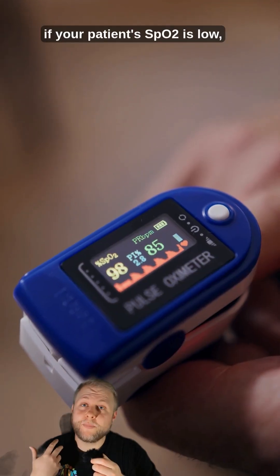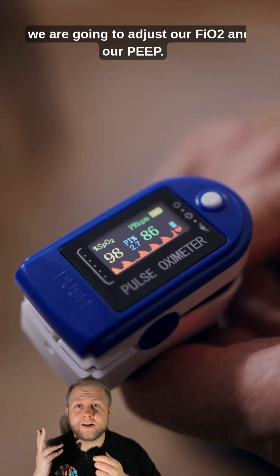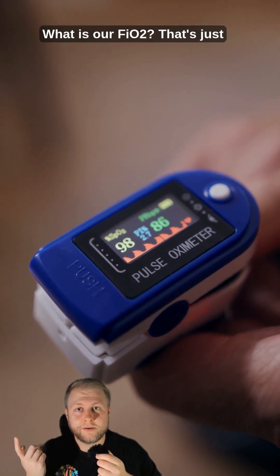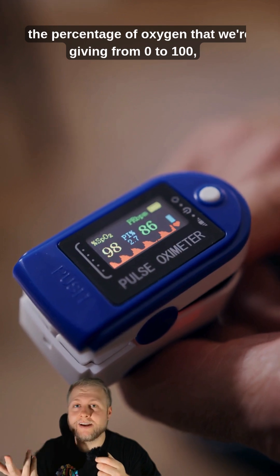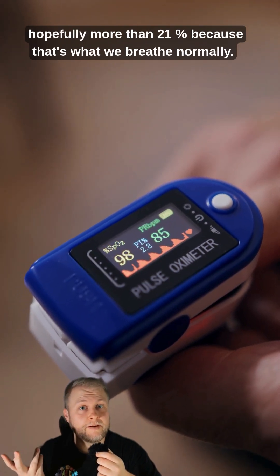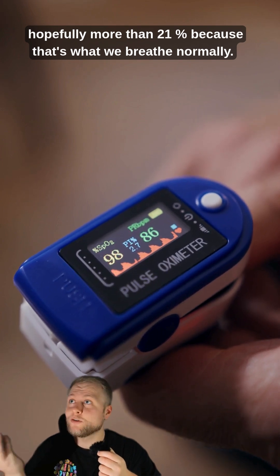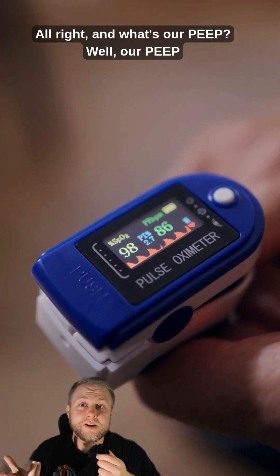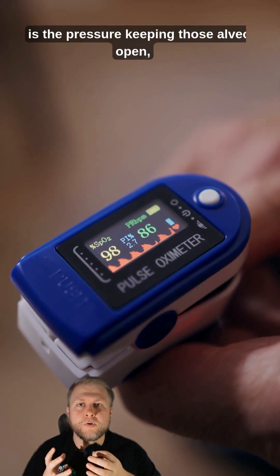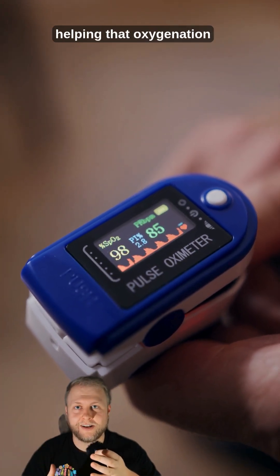So if your patient's SpO2 is low, we are going to adjust our FiO2 and our PEEP. FiO2 is just the percentage of oxygen that we're giving, from 0 to 100 — hopefully more than 21%, because that's what we breathe normally. And our PEEP is the pressure keeping those alveoli open, helping that oxygenation.